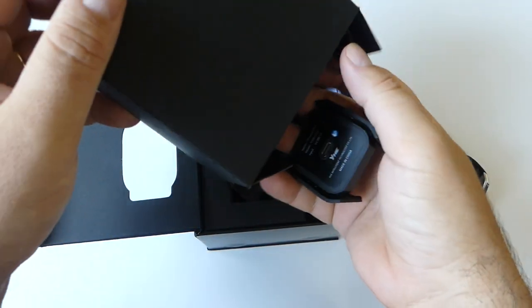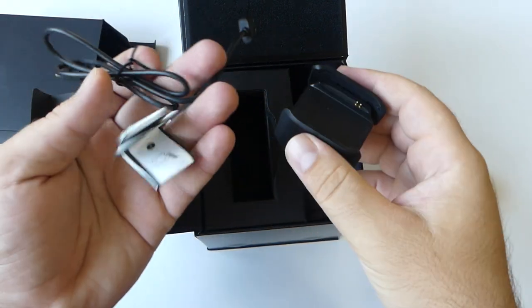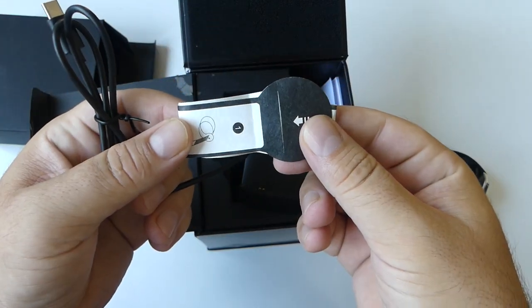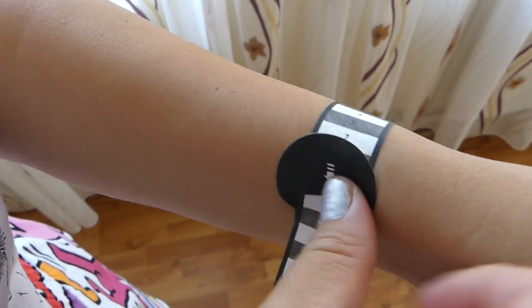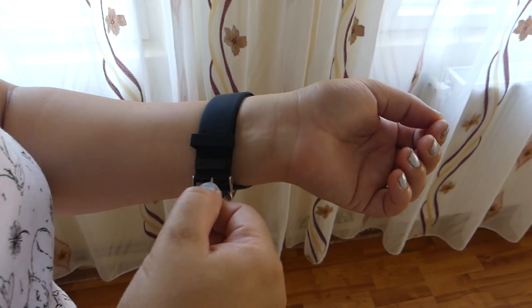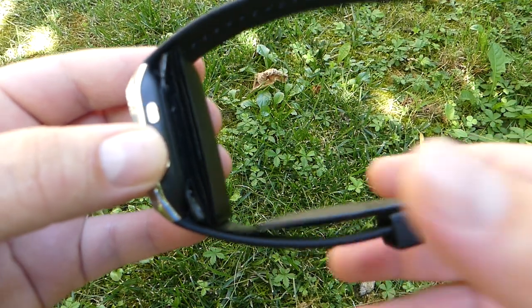Also included is the manual and a scale to measure the wrist circumference. BP Dr. Med uses an adjustable strap design that can be worn by people with different wrist circumferences. Simply use the included wrist circumference measuring tape for an accurate measurement to help choose the suitable strap length.